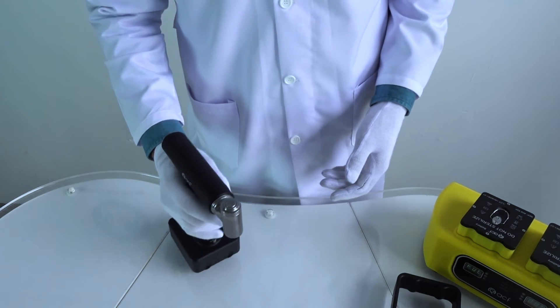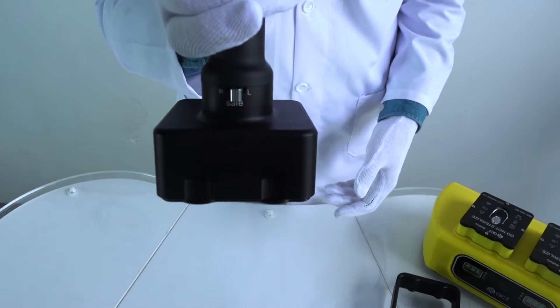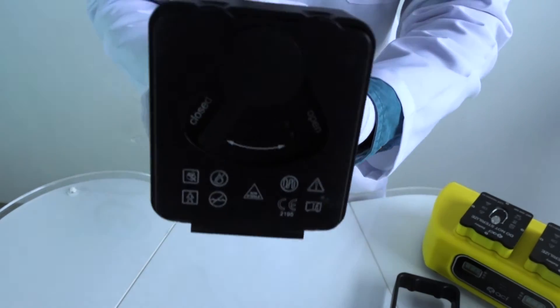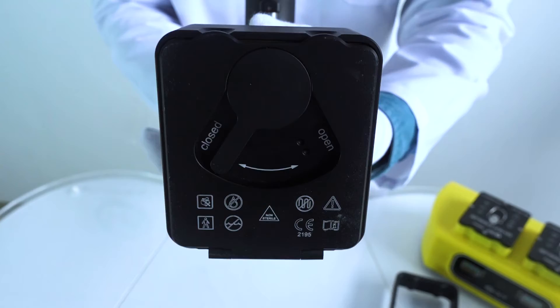Before any action is taken with the power tool, it should always be brought to the safe position. Meanings of all signs are stated in page 7 of instructions for use.